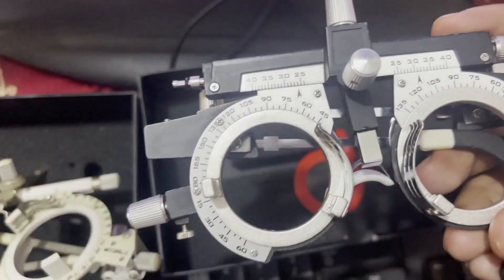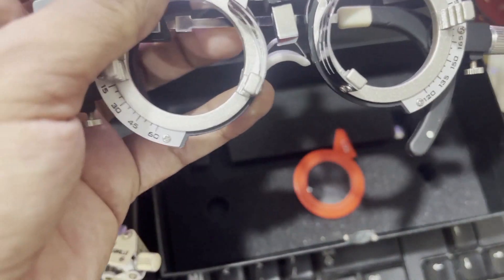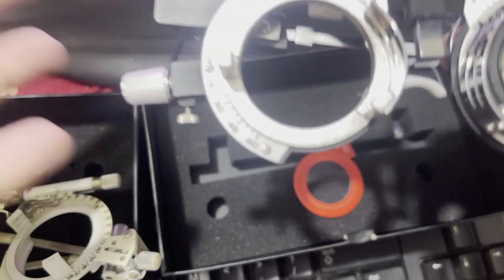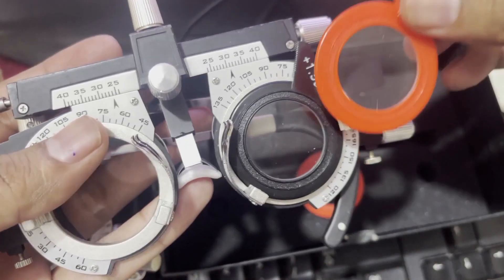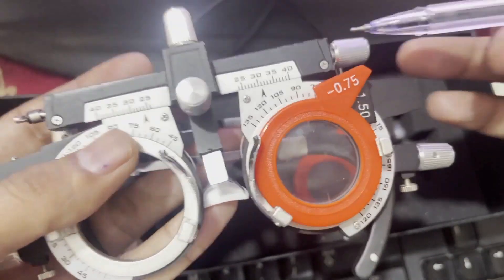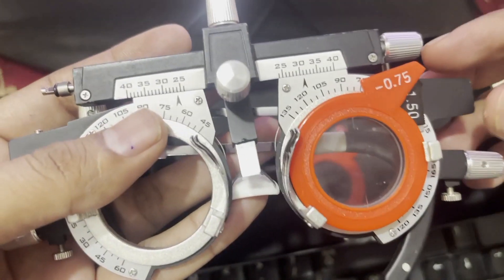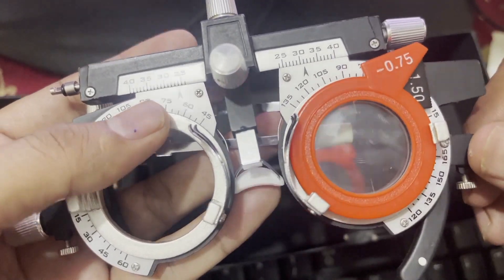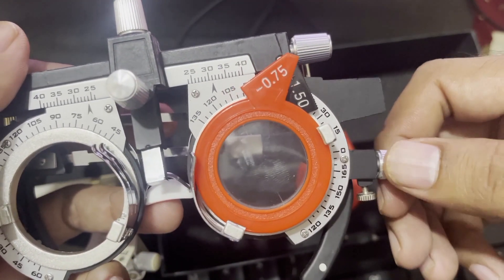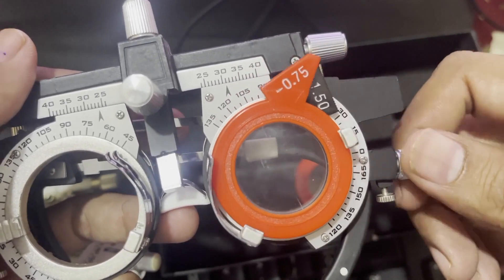This rotating knob is for the adjustment of the axis of the cylindrical lens. For example, if our spherical correction is plus 1.5 and our cylinder is 0.75, you can see the cylindrical axis line. Right now the cylindrical line is at 90 degrees, but if we need a 120-degree axis, we can simply rotate this knob to realign the axis. This rotating knob is for adjustment of the cylinder axis.